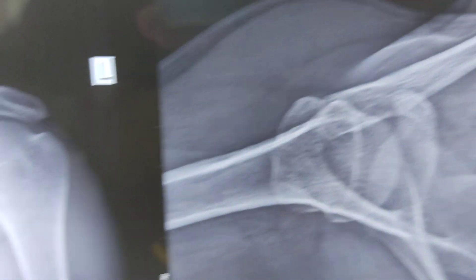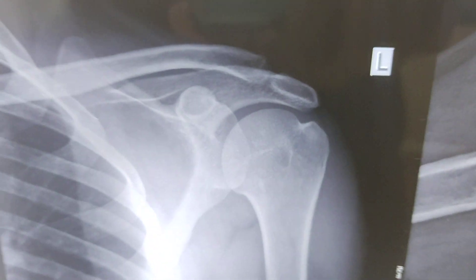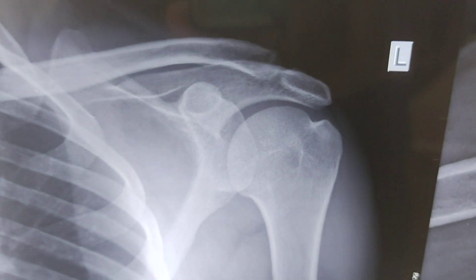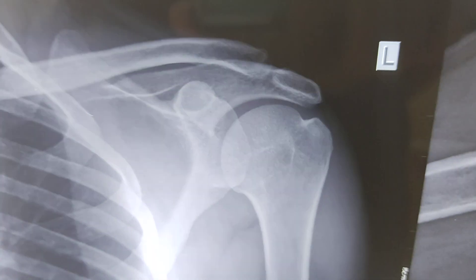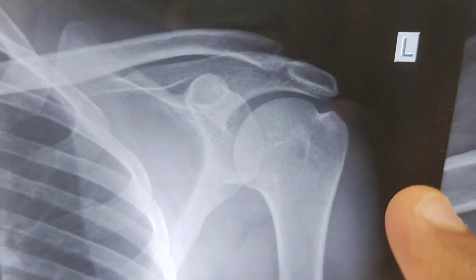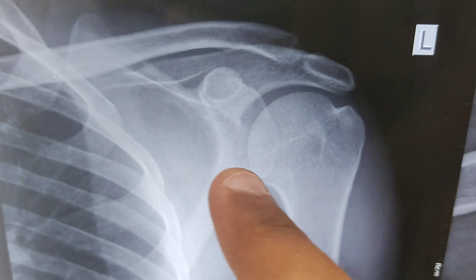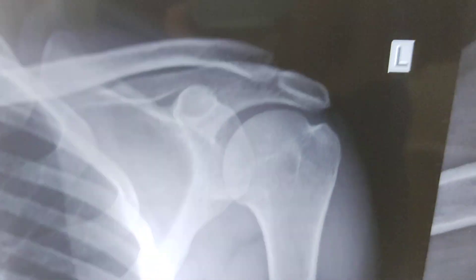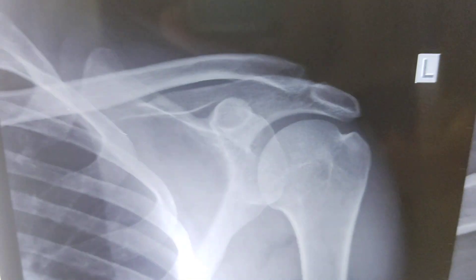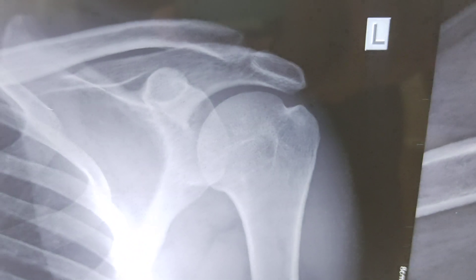If you have any doubts about reading the X-ray of the shoulder joint, you can ask in the comment section below. Sometimes we see Hill-Sachs defects, and sometimes we see bony Bankart lesions on X-ray, but there are special views for those. If you have any doubts about the shoulder X-ray, feel free to ask in the comments.